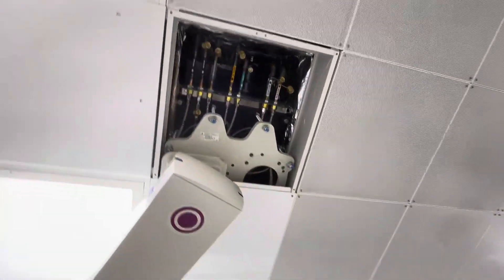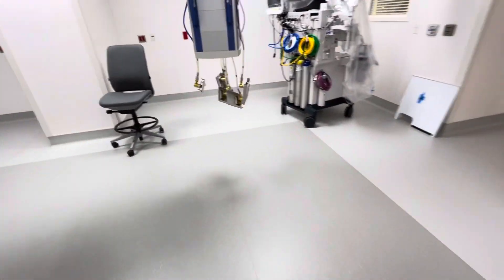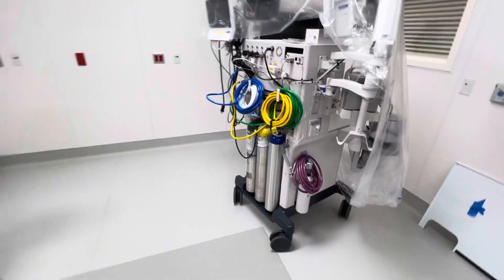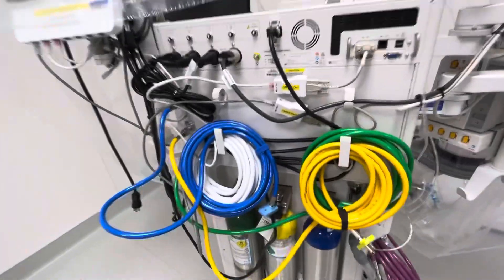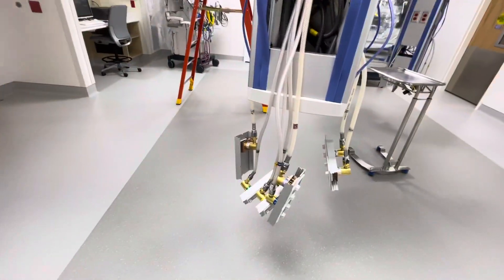Alright, I don't hear any leaks. We'll have to put it under test for a little bit. Part of the problem might be if this machine is hooked up to those outlets and it's causing a false test result.